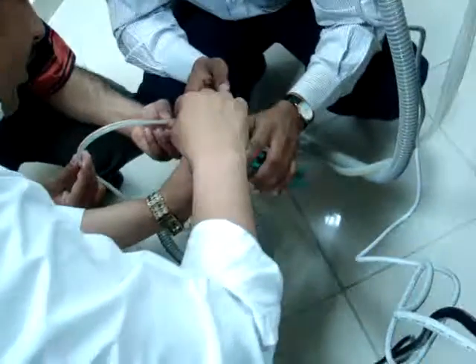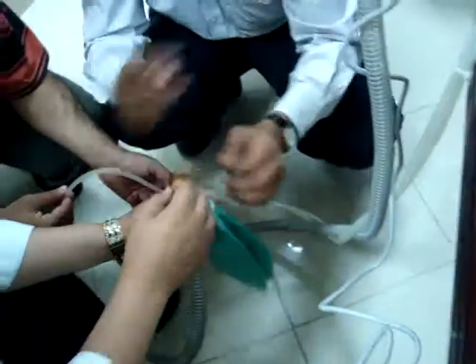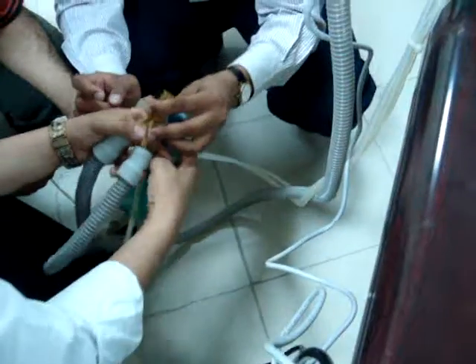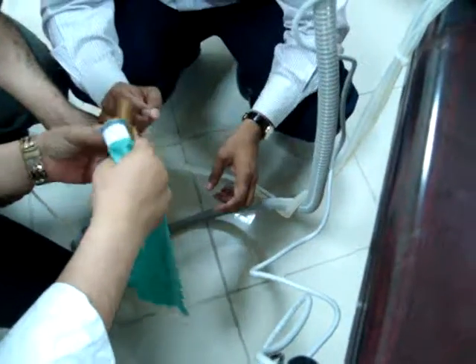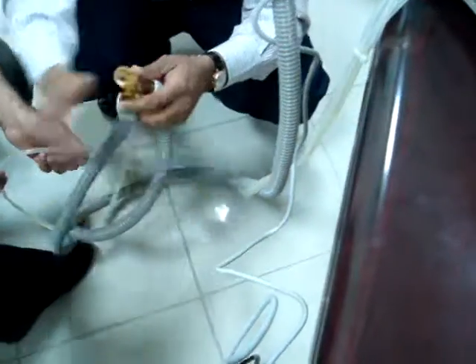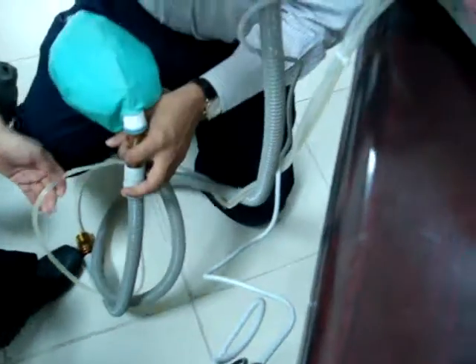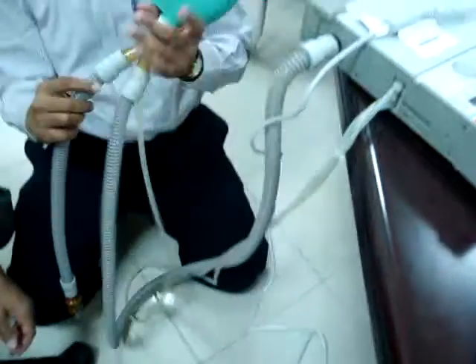And what is this one? Why is the return here, and not here? There is no valve, nothing. Okay, I will explain. This is a very good question. I will answer. This is the input.